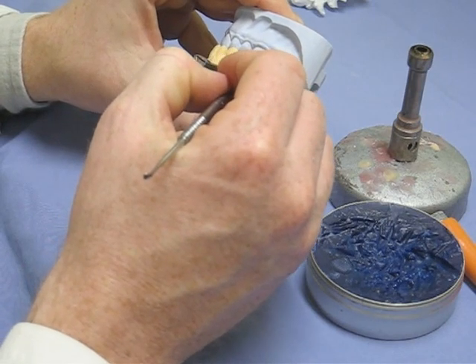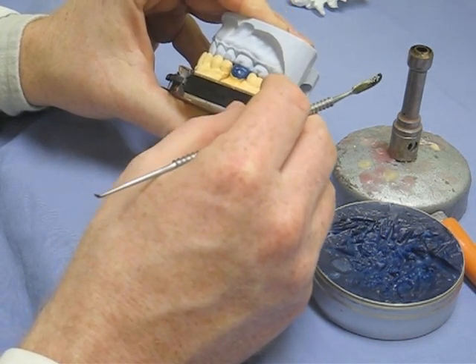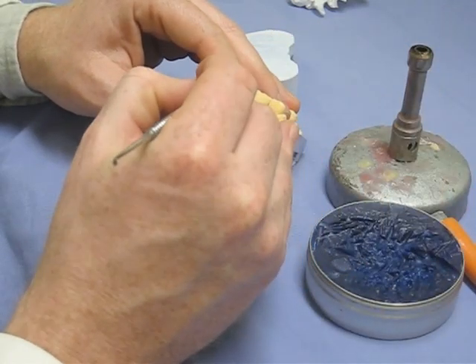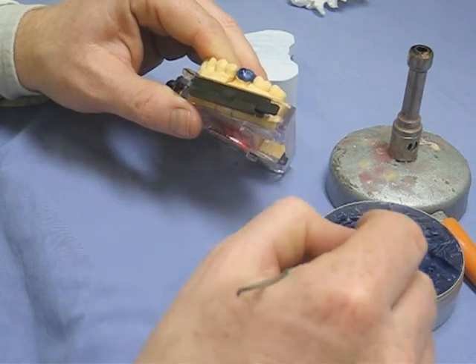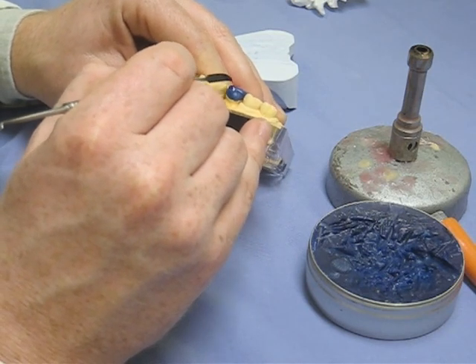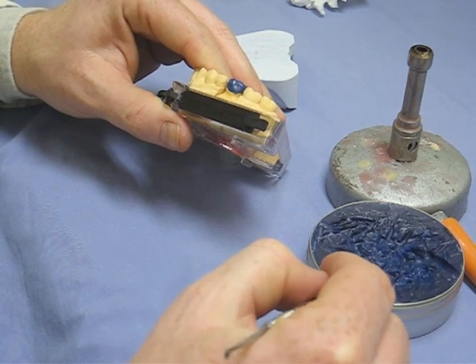That should be the last bit going up to the buccal aspect now. It's all about the temperature of the wax — if you put it on too hot or your knife is too hot, you'll wipe out all the work you've done so far. That was Duncan checking himself just before he might have destroyed his crown.